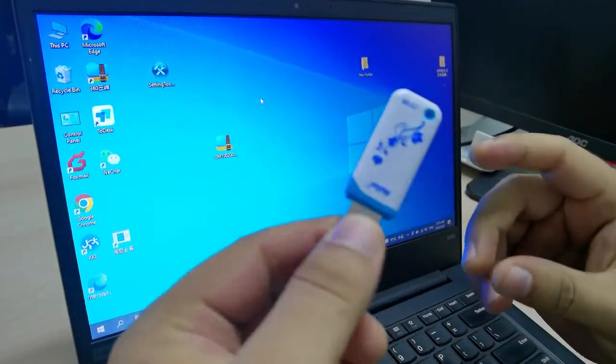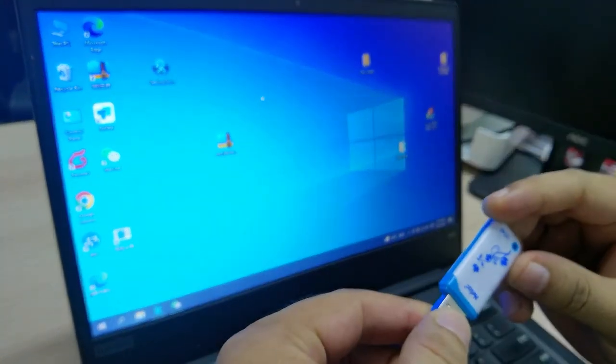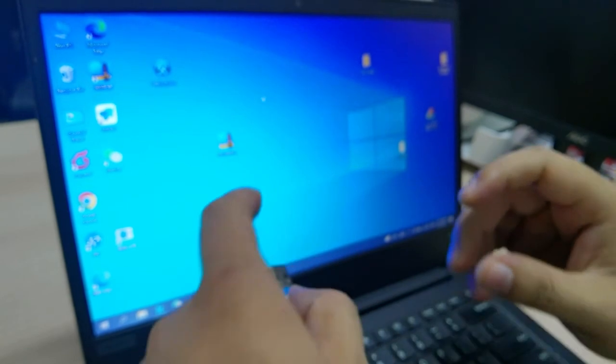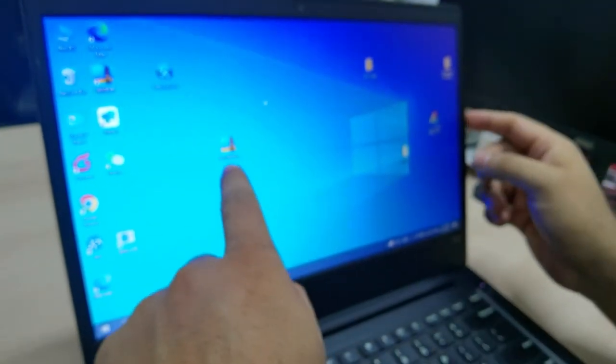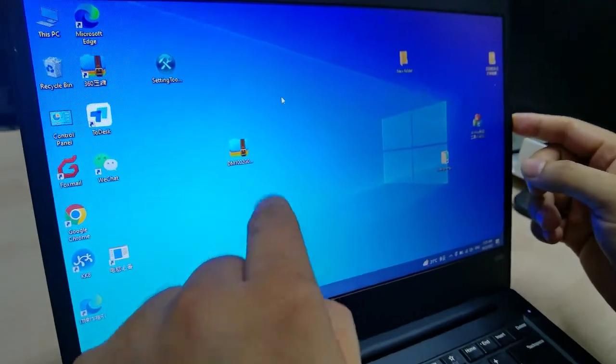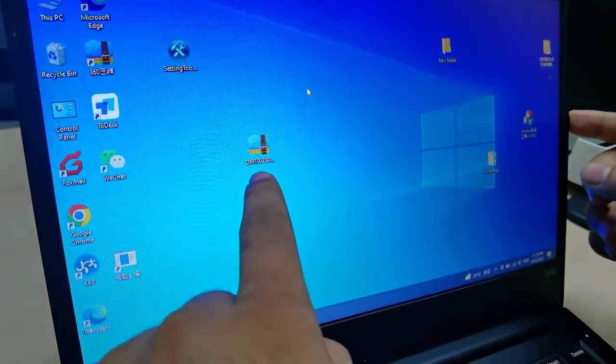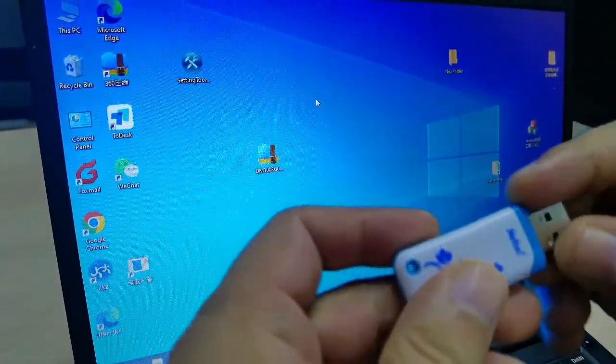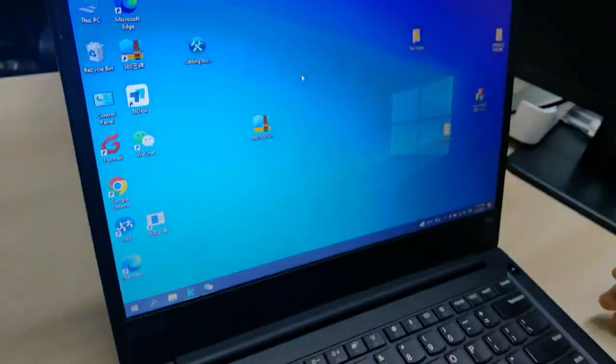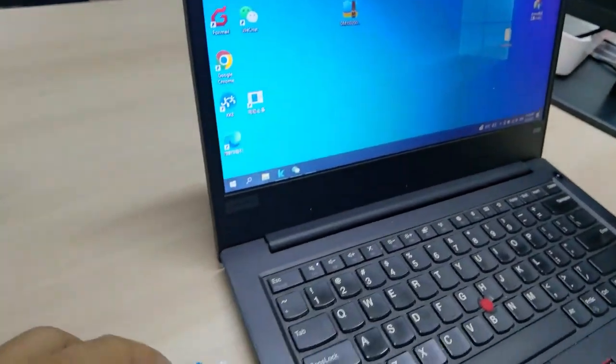Hi, how to operate D36 analyzer software. Here on the screen you can see this is the software. This is a zip file and this is a flash drive. First, I will connect my flash drive with the laptop PC.